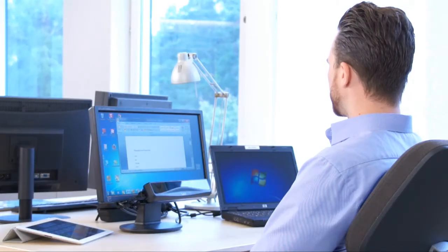With market-leading Tobii quality eye-tracking and an easy-to-mount, easy-to-use plug-and-play design, the world of standard computers is opened up to a new input method: eye control.